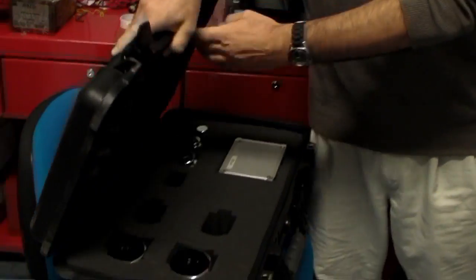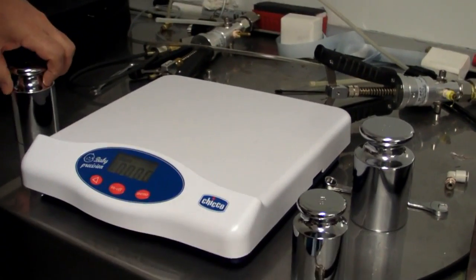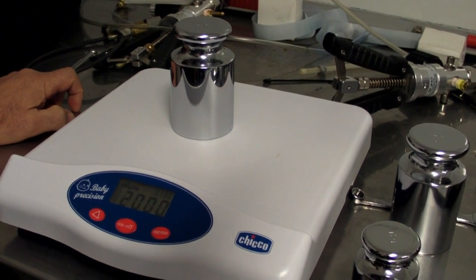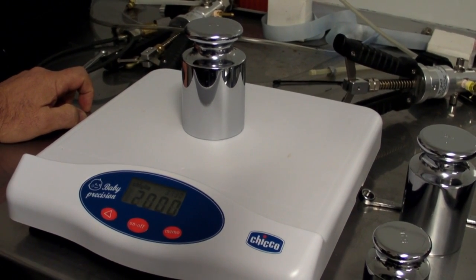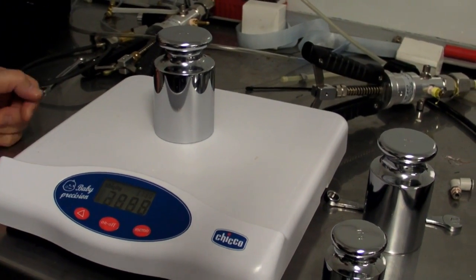Let's start at a typical birth weight — let's start at two kilos. Charles, tell us what we've got here. Well, what we've got is a set of precision weights in a very nice case. They're made out of something very heavy — they don't even need a good temperature coefficient, they'll just change size, that's all. Let's start at two kilos. We'll document this. Look at that — it's spot on, right on two kilos. These scales go up to about 13 kilos. That is spot on.